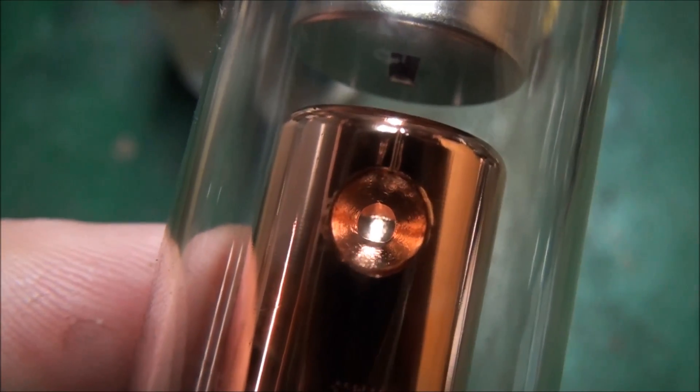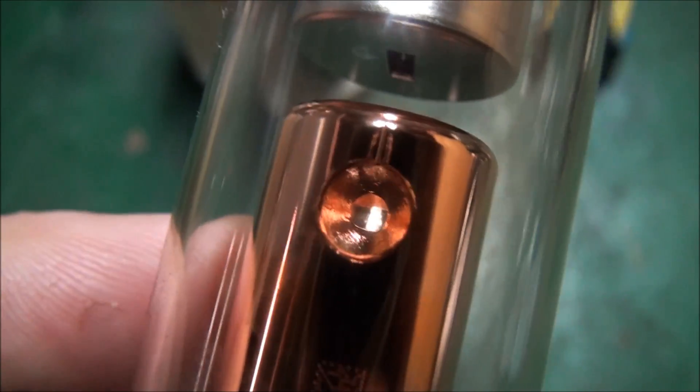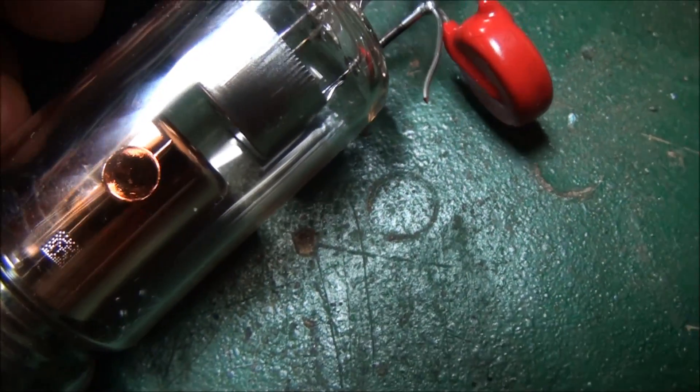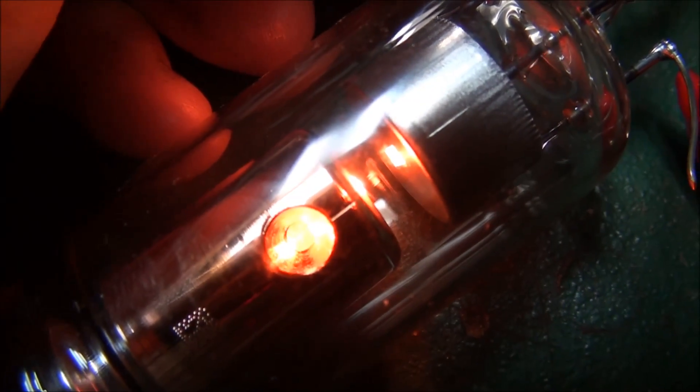That the dentists can study. Up the top here is a filament, and I've got a battery here so we'll energize that filament and have a look at it. And just quickly look at the older one.